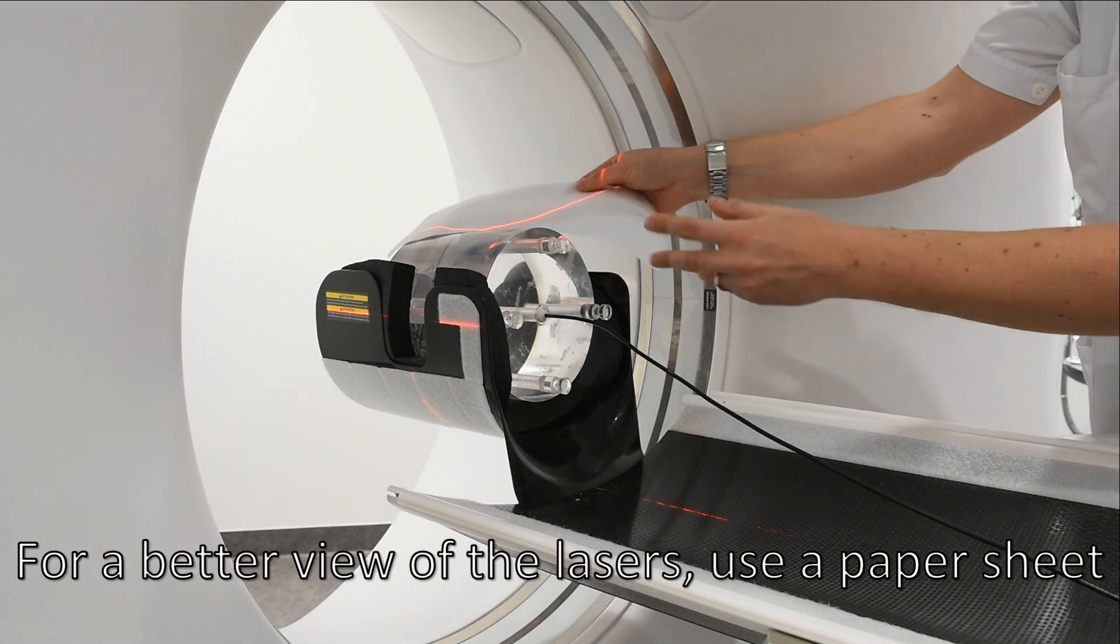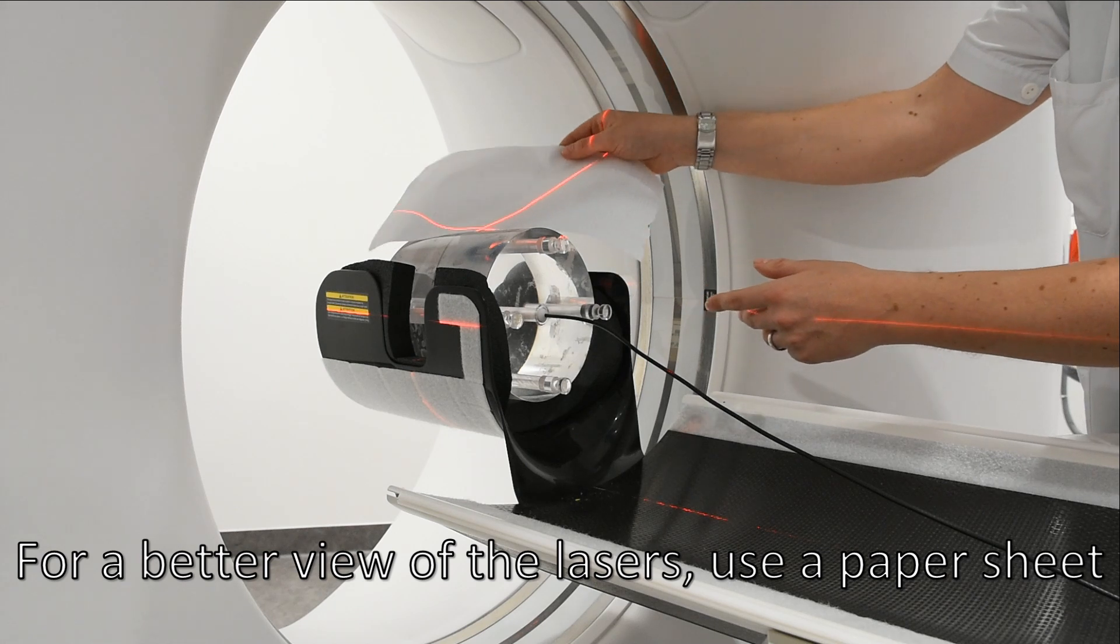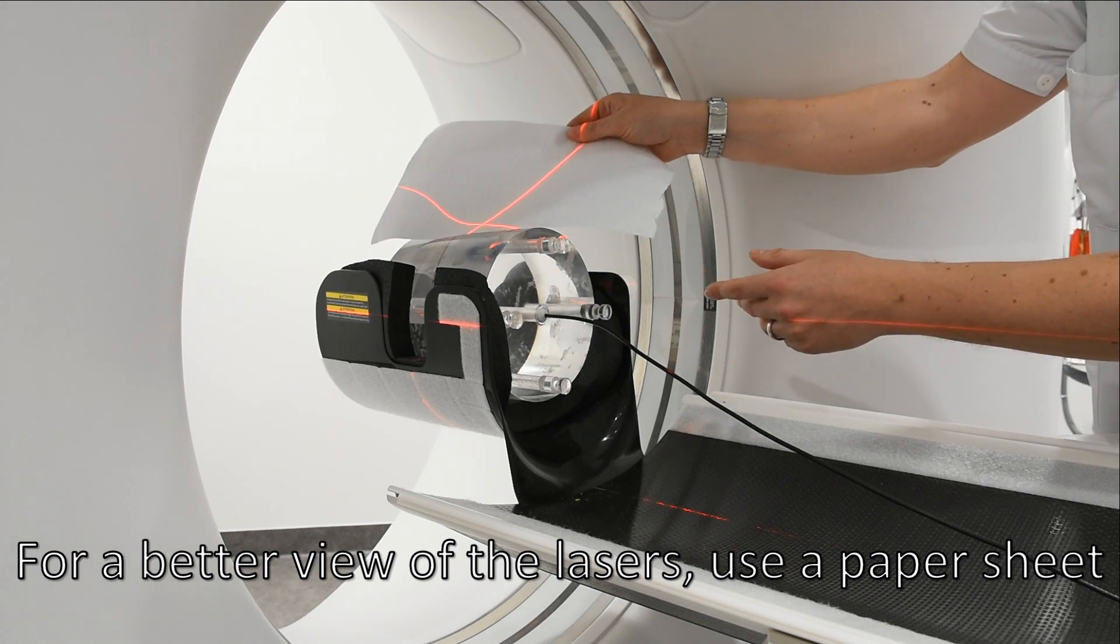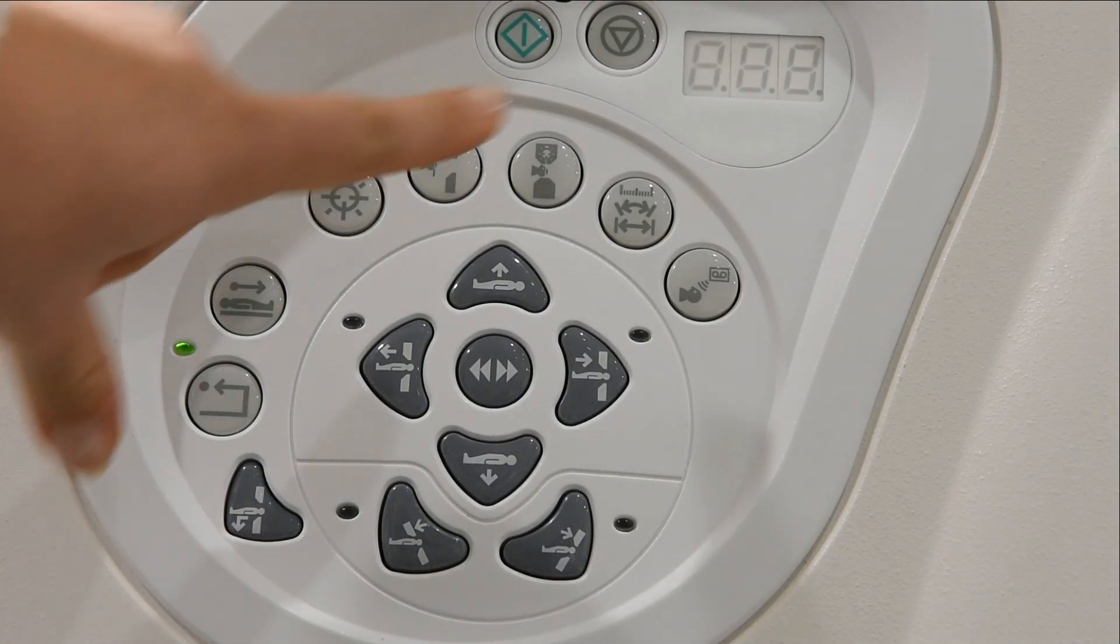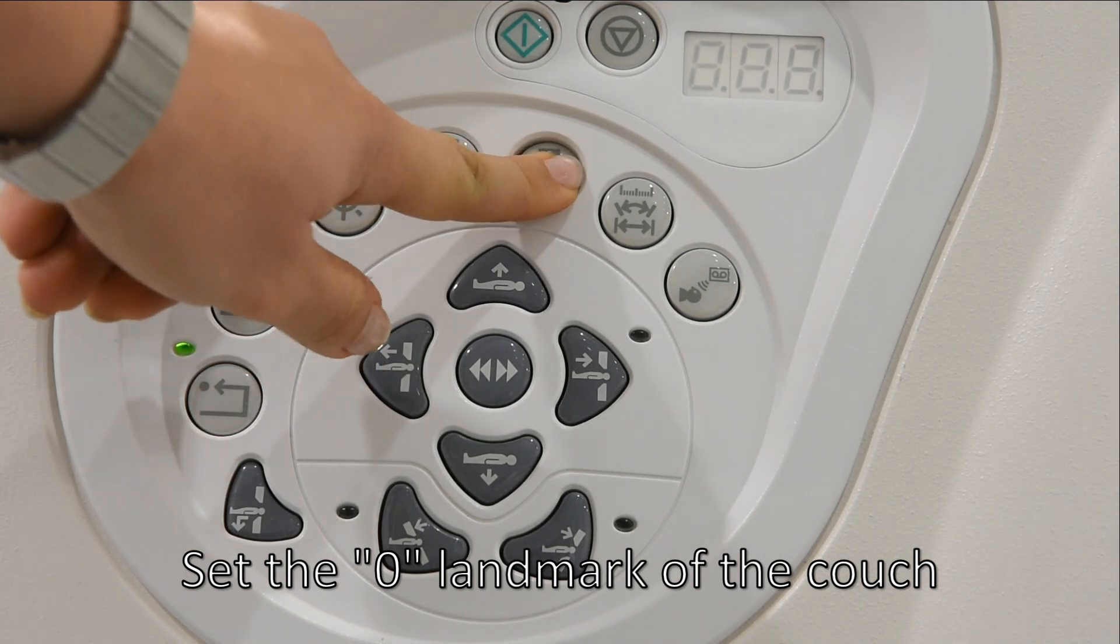For a better view of the lasers, use a paper sheet. Set the zero landmark of the couch.